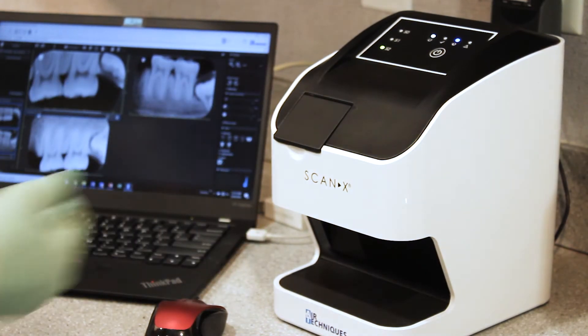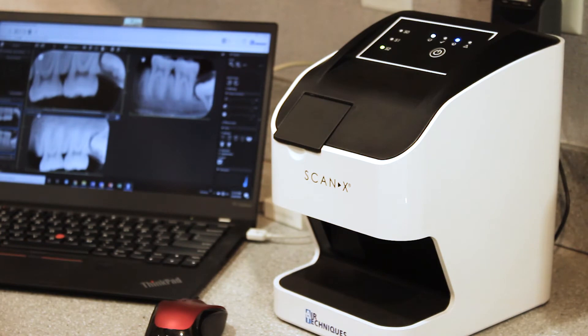The machine is now scanning and it will eventually drop out of the bottom fully erased, ready for its next exposure.